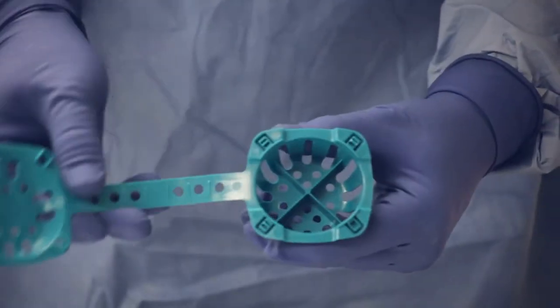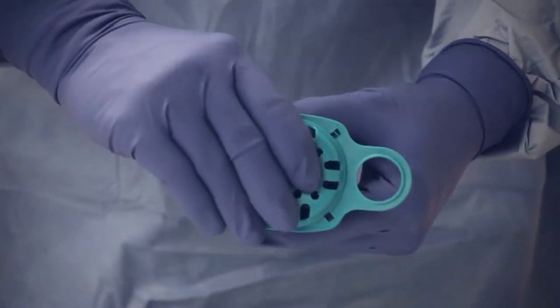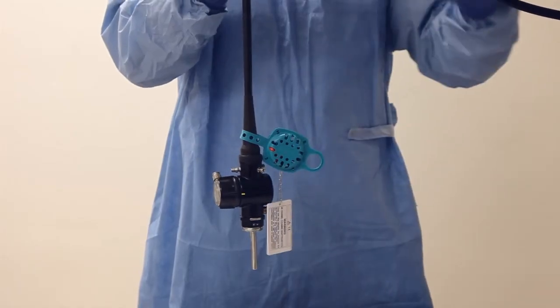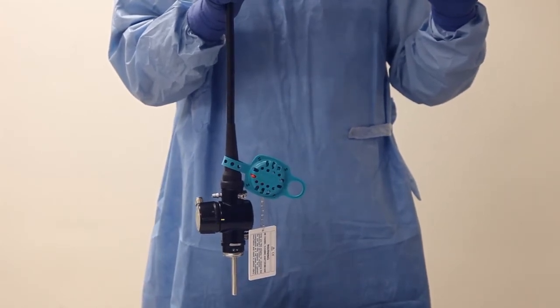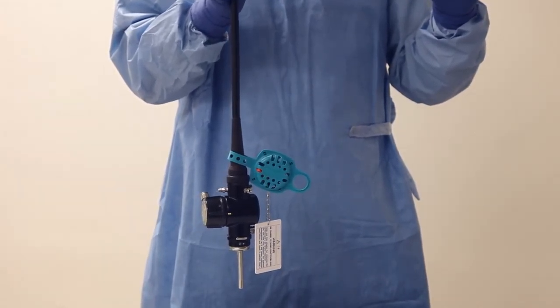SmartClick technology ensures that the cage cannot be closed again once it has been used. ValveSafe locks onto the parent endoscope without concealing any part of the scope, ensuring full cleaning during the AER process.